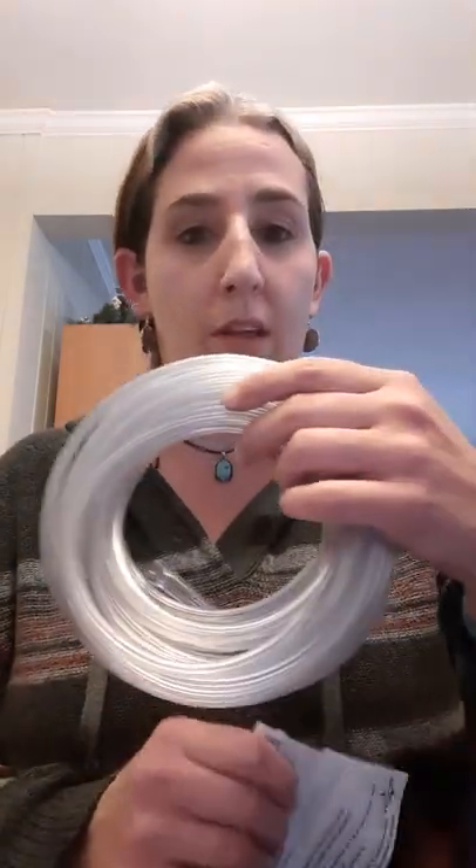You're hooked directly up to a portable oxygen tank. One of the things that I have stressed about and not had an answer for is this tubing that we get. This one is done by Medline and is not compatible because there's no way to use this collar when you're on the road. We have to come up with something that either fits directly onto her trach hole, but the Ambu bag is meant for someone who needs resuscitation and is very still and being controlled — sometimes that's not what's going on. She just needs to breathe oxygen.